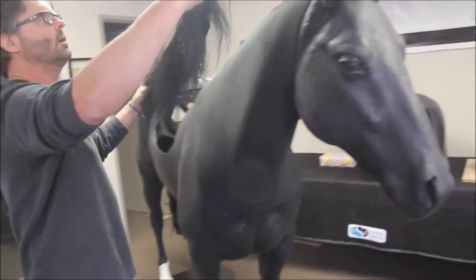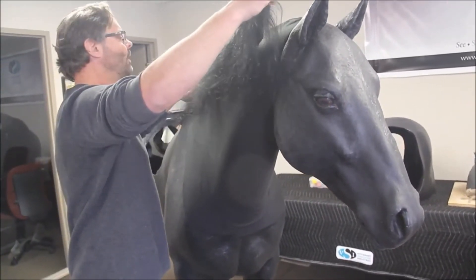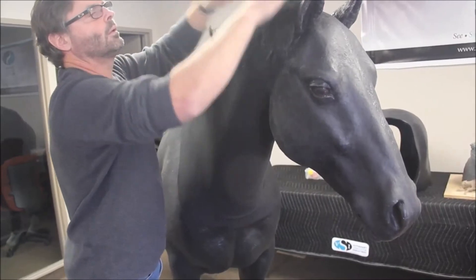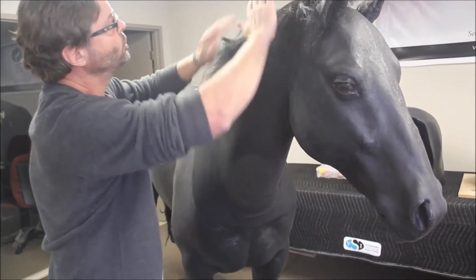The neck hide or covering is a piece of fabric that slides over the neck to cover the veins and intramuscular pads. The mane is simply attached with Velcro.